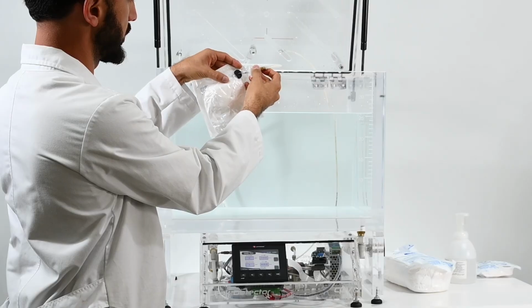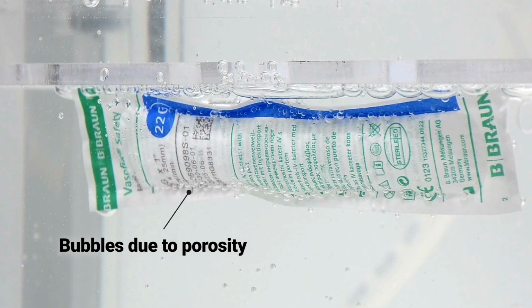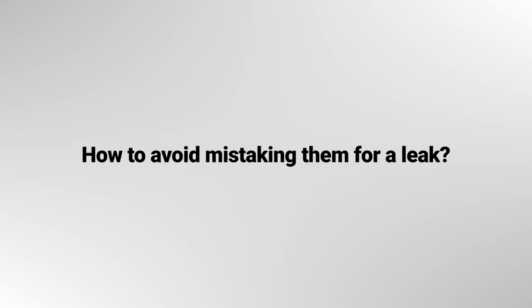When you test the seal integrity of a sterile package with Tyvek, its porosity can create isolated bubbles. How can you avoid mistaking them for a leak? In 2 minutes, I'll show you a simple adjustment.